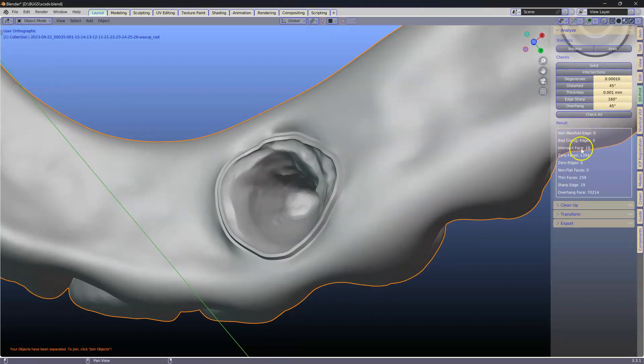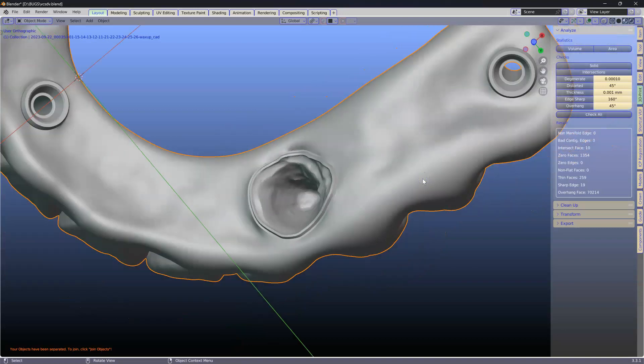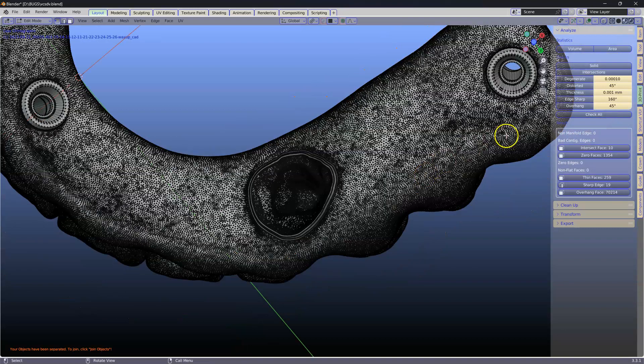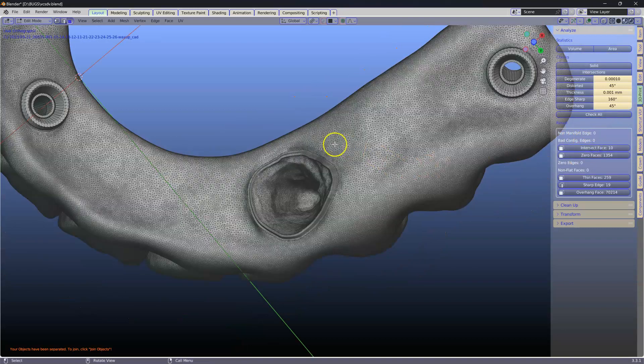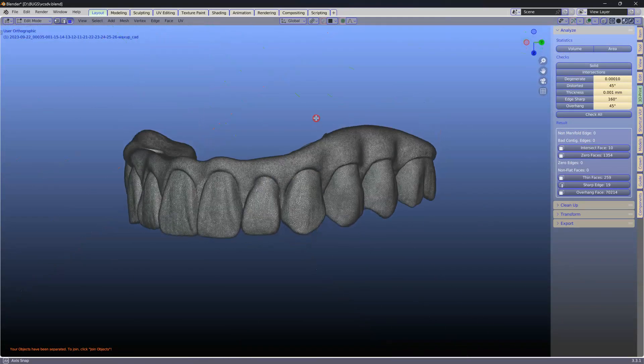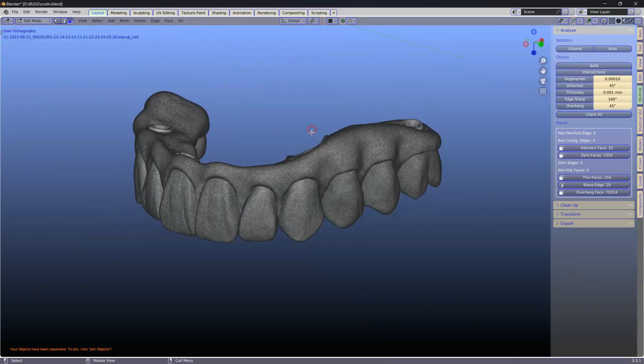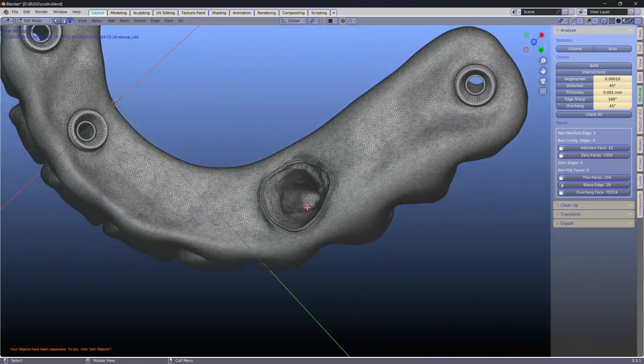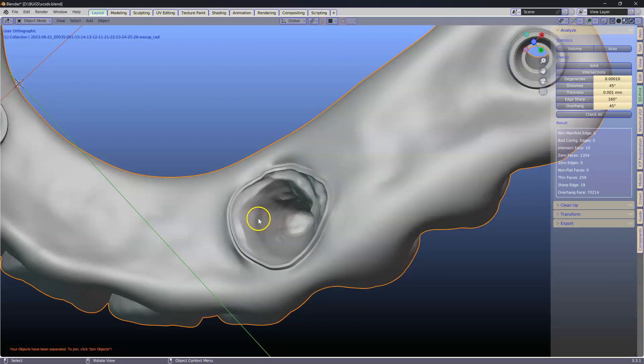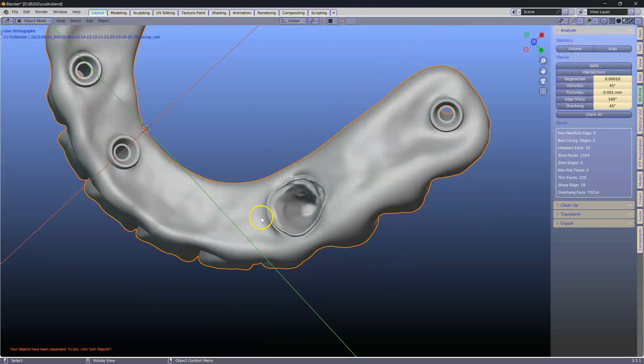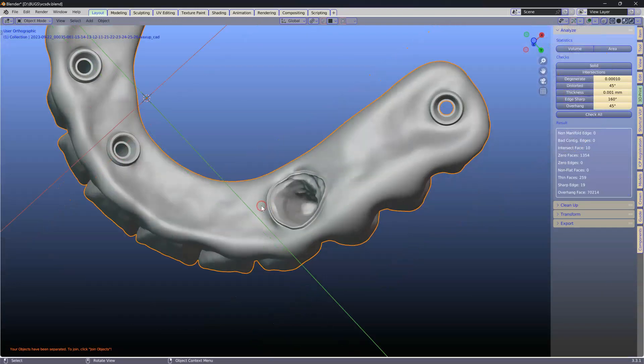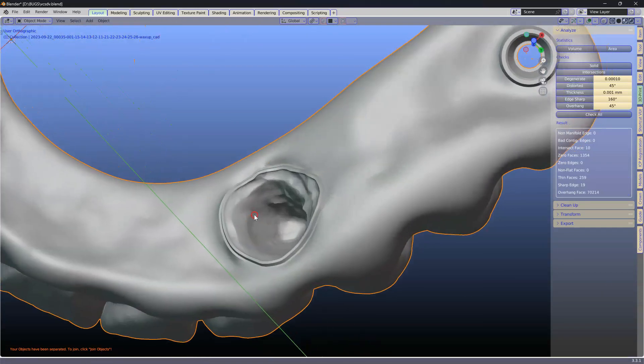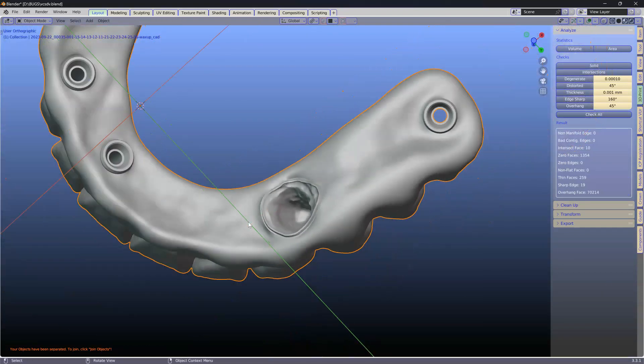Bad edges, there's none. Intersecting faces, there's a few. Let's have a look. None of them are over here, so this is good. So we don't have to worry about it. We've got a good merged mesh structure and we can now continue making the eyebar for bridges. Good luck. Cheers.